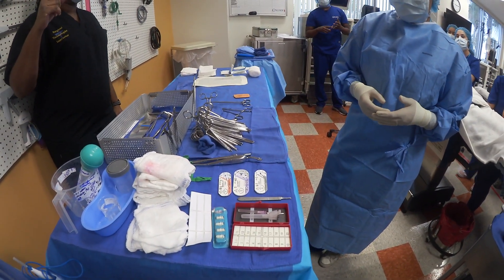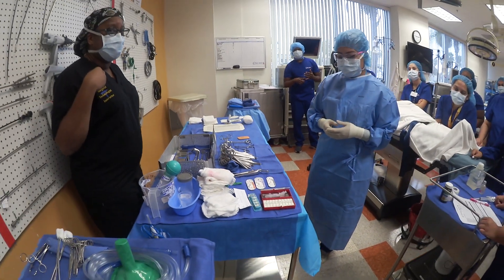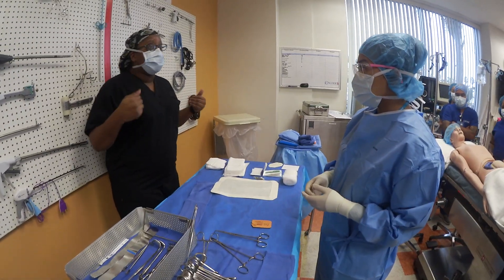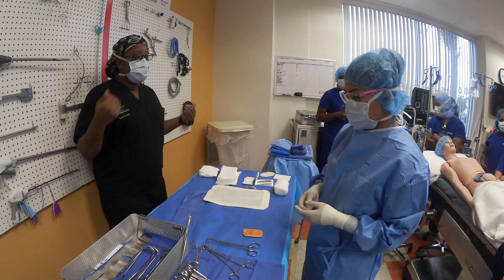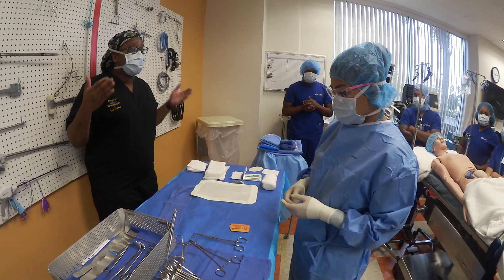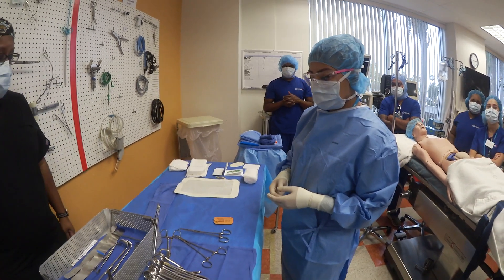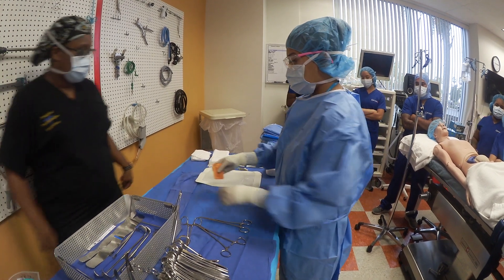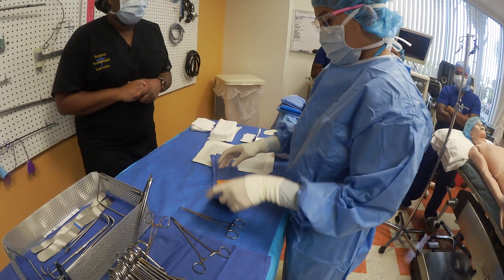The first one we're going to use is the PDS. Create a suture book with a folded towel. So we know our doctor also likes to use free ties — we know because our nurse put up Ethibond. We have Ethibond free ties. We want to be able to get to the free ties easily. Place free ties between folds of the towel and place the towel on the Mayo stand.